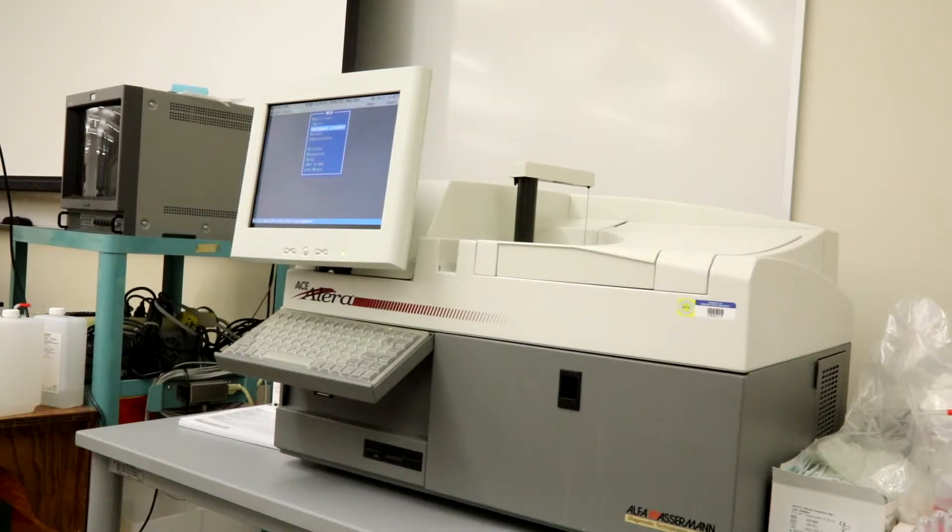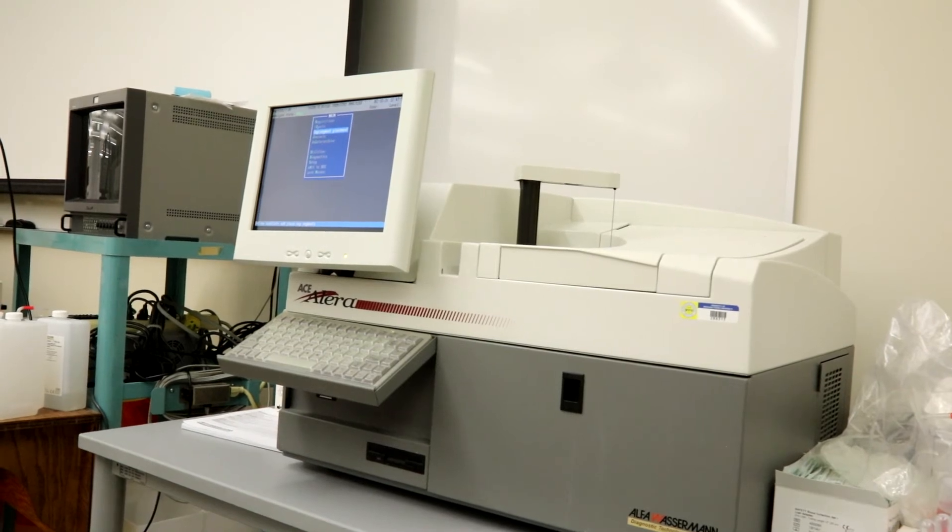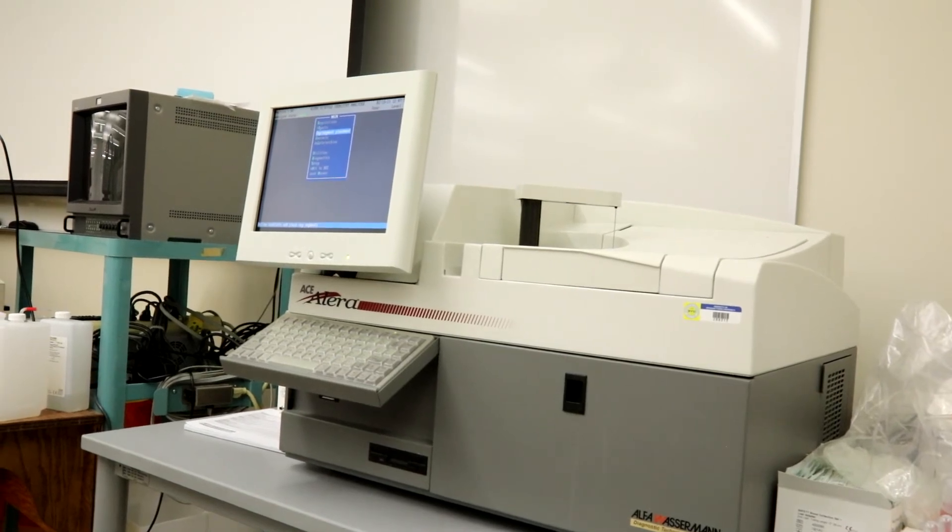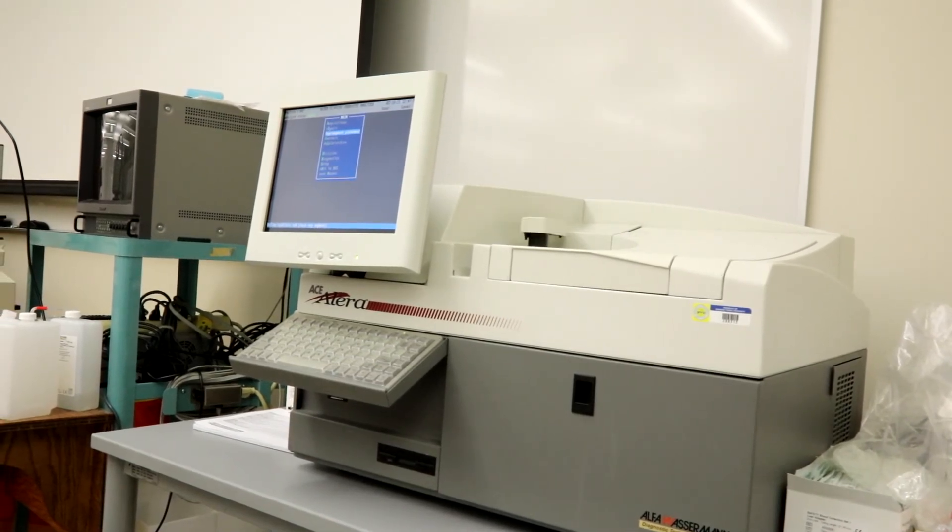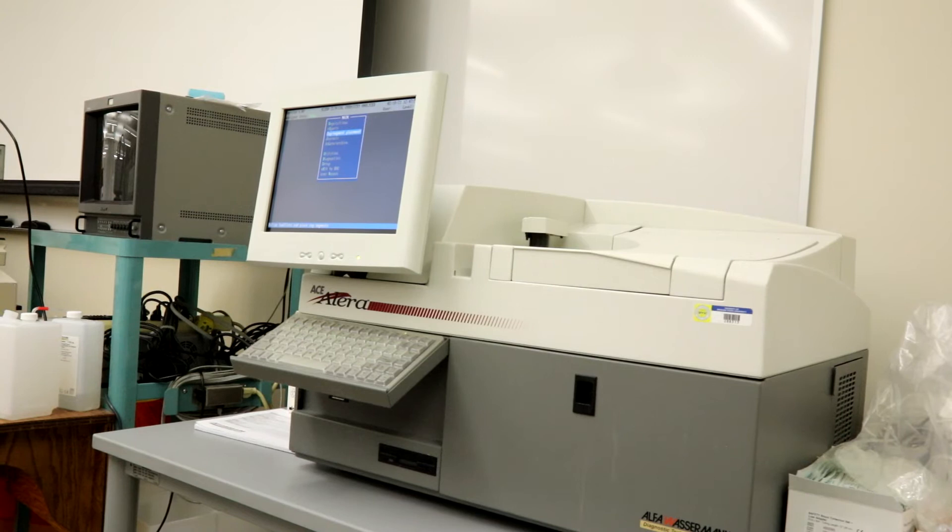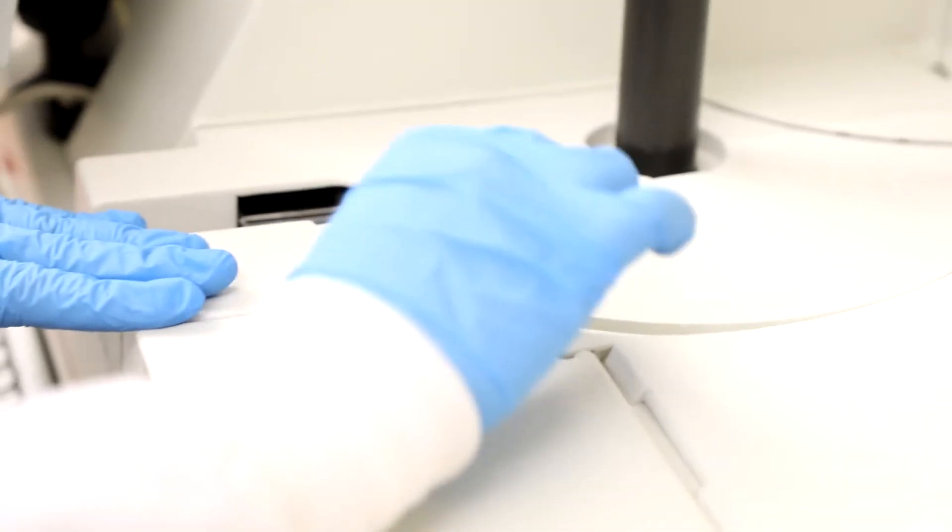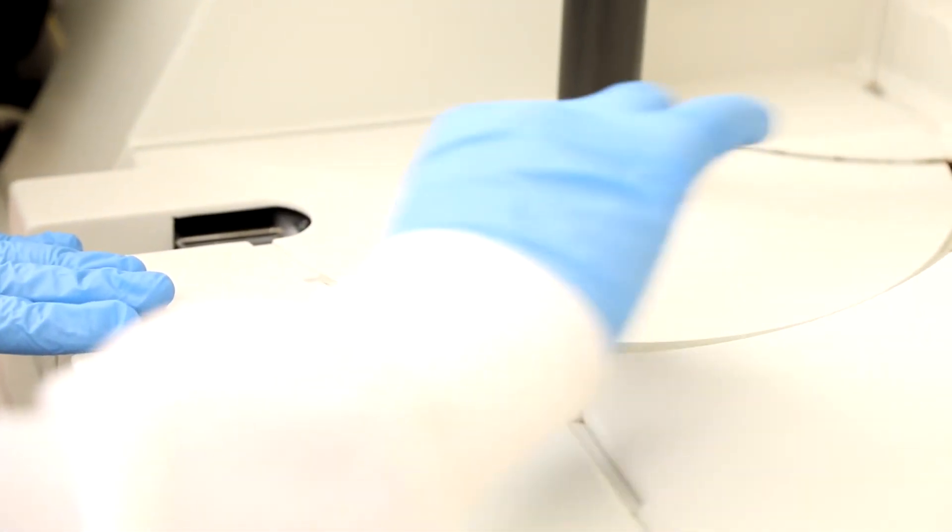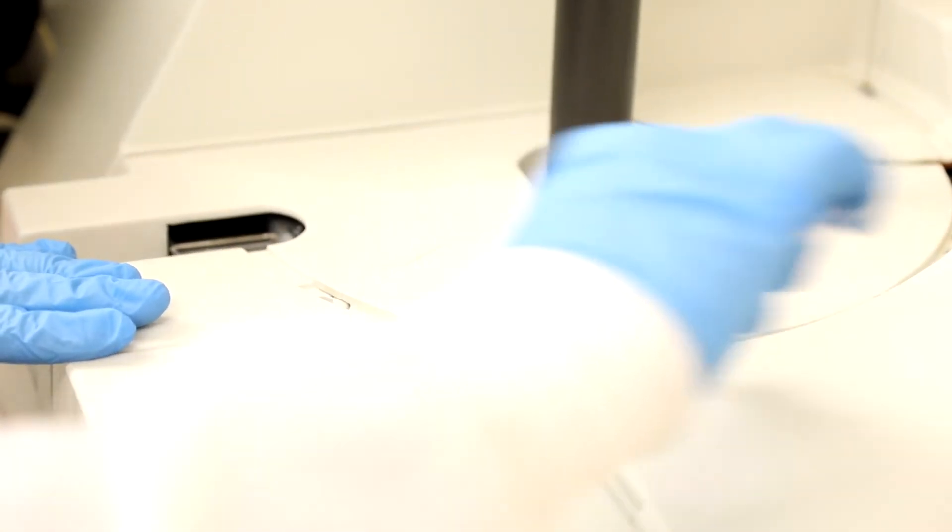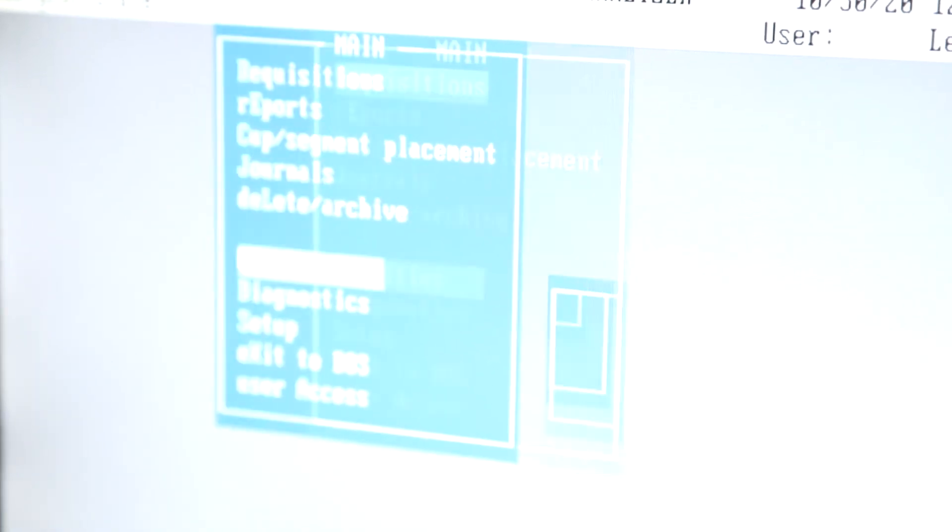Press Escape twice to return to the main menu. Once you are at the main menu, you can do maintenance on the probe. First you will clean the touch plate and probe pathway. On the main menu, select Utilities, then probe.